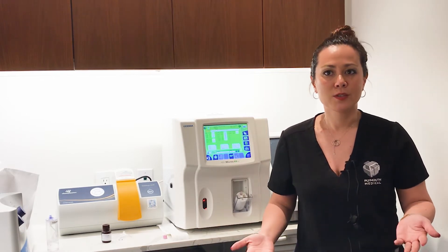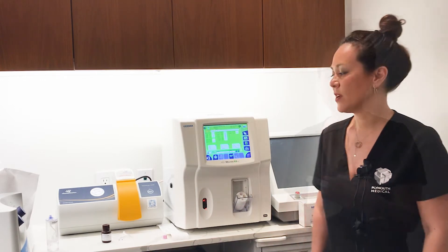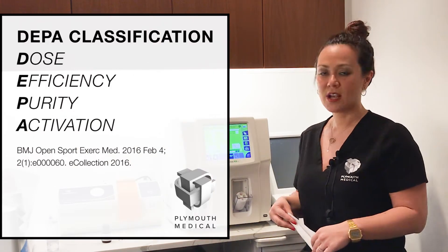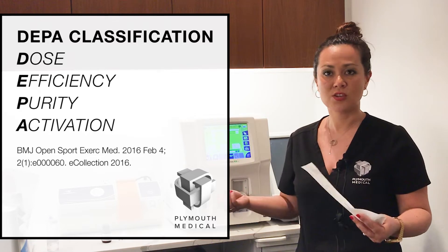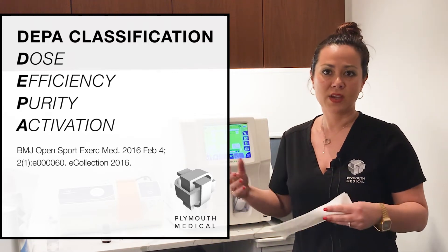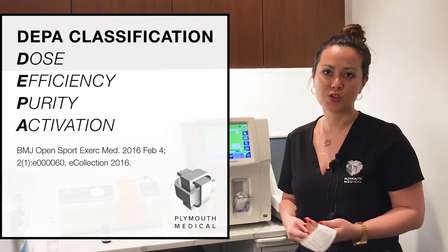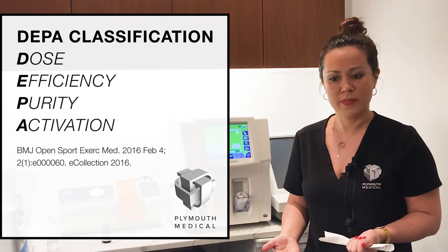There's no need for dilution, which just further complicates quality control and cell counting at the point of care. As you know, platelets, when they come in contact with plastic or when they come in contact with air, they do tend to degranulate. And therefore it's very important when you're doing point-of-care platelet counts to use the right equipment.